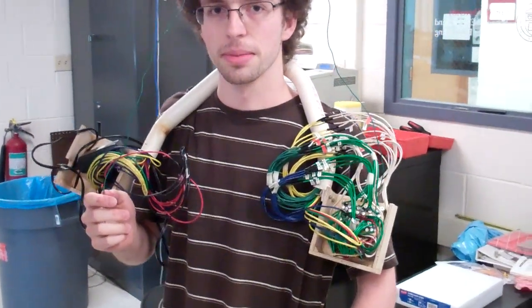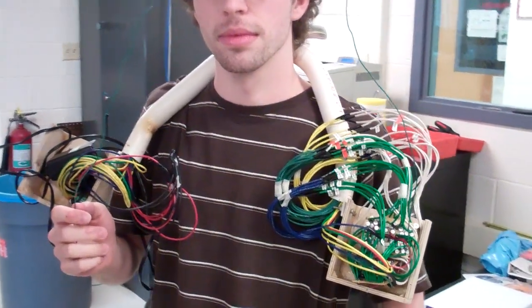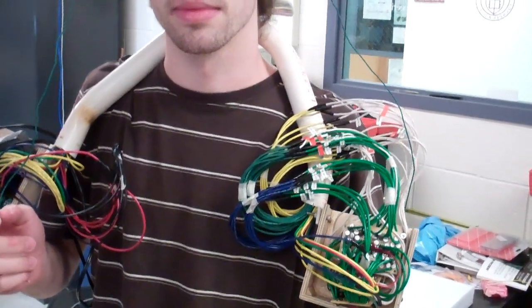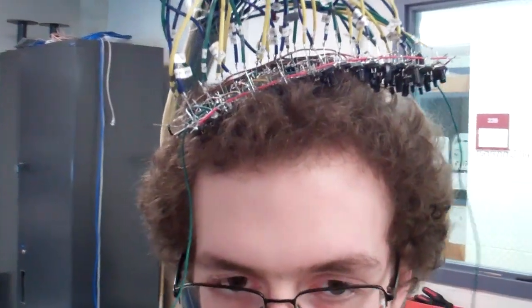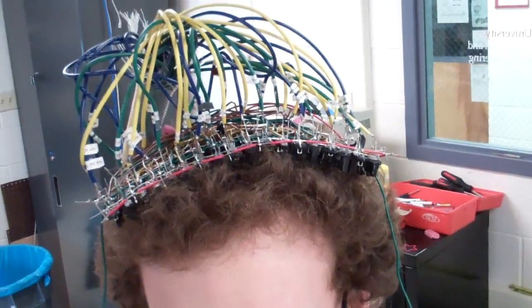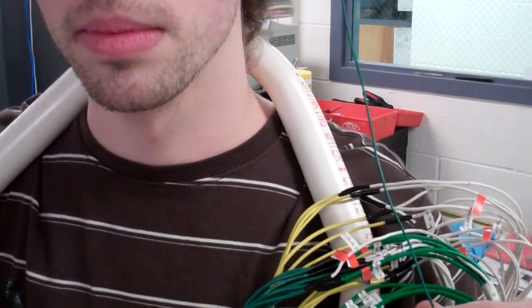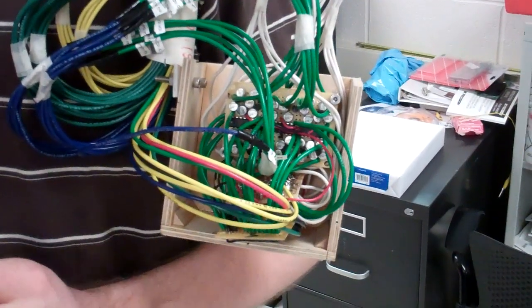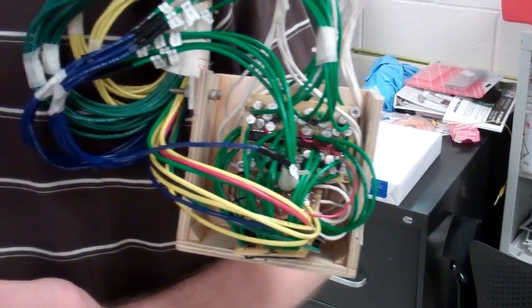So you built an infrared spectroscopy unit for monitoring brain oxygenization. And the sensor - how many channels do you have on the sensor up there? There are currently 36 channels, and then you have the ever-so-cool PVC neck piece going down to the amplifier head stages over here.